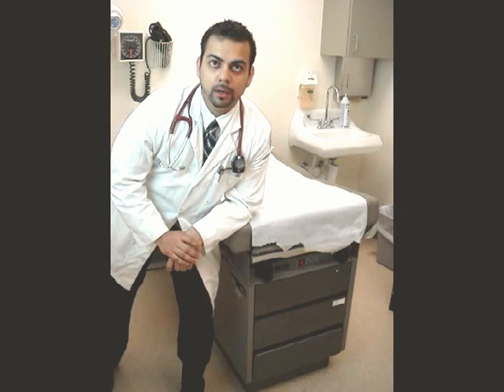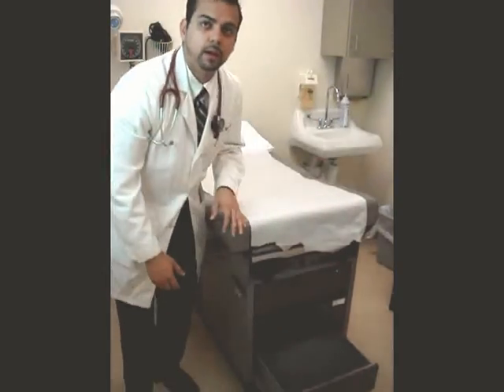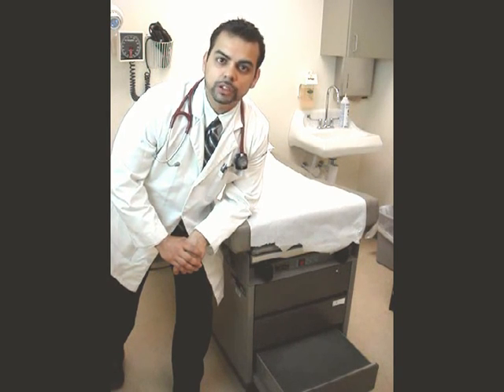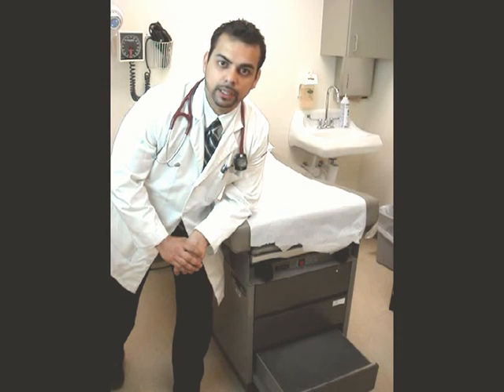When it comes to the patient bed, there are four aspects you need to be aware of. The first is the step that helps the patient come up to the bed, typically a pull-out located at the bottom foot of the bed. Ensure this is pulled out and accessible for your patient when moving to the physical exam. Alternatively, some beds can be raised and lowered electronically, so ensure the bed is at its lowest position so the patient can safely get into the bed.